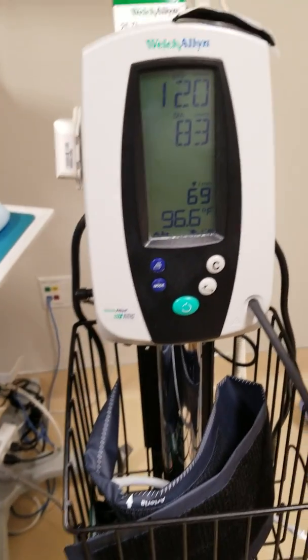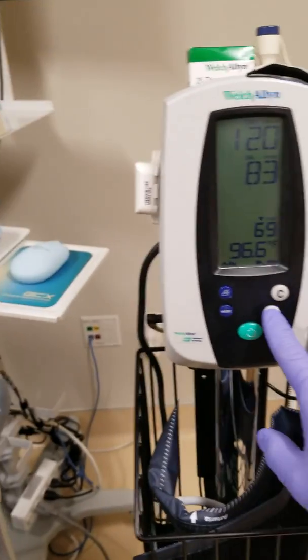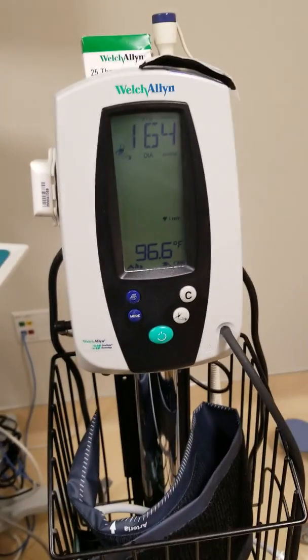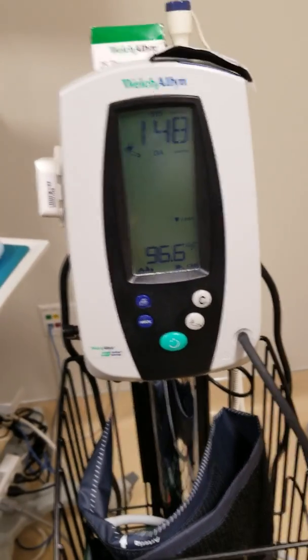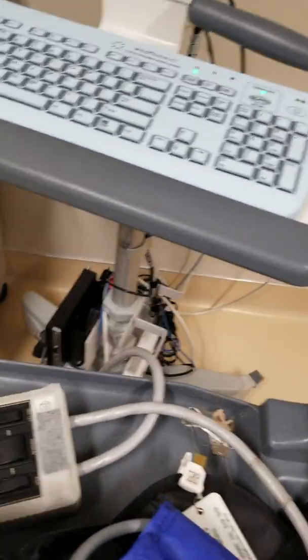There is a certain spec on every machine. If it's been off — like in this case, the machine was off and no one has been here for about four hours — just do it a couple of times to get the pump up and running before relying on the reading.